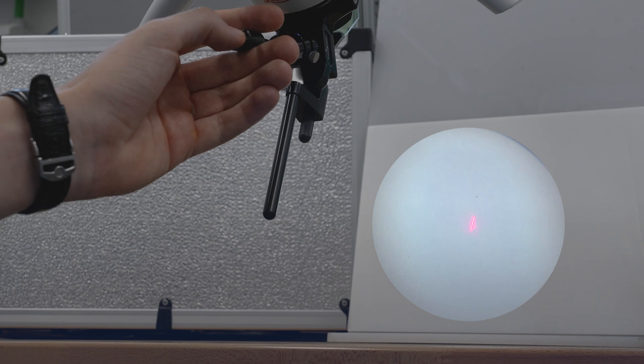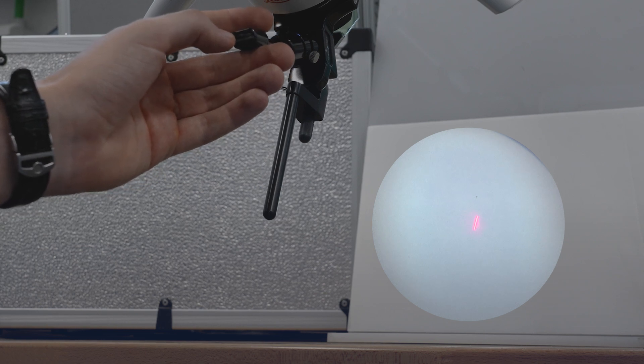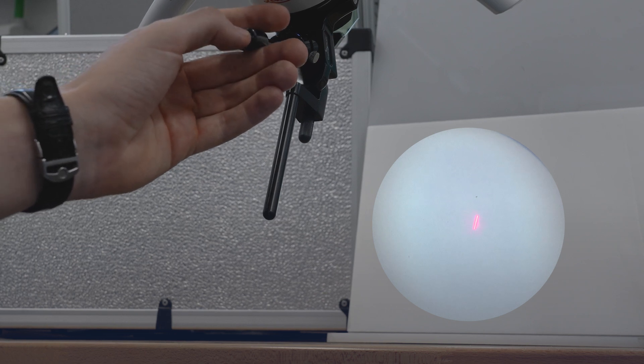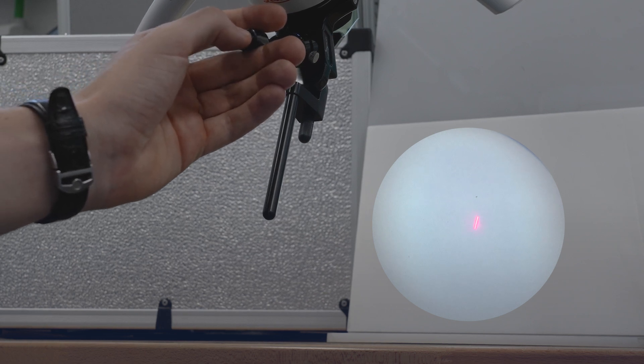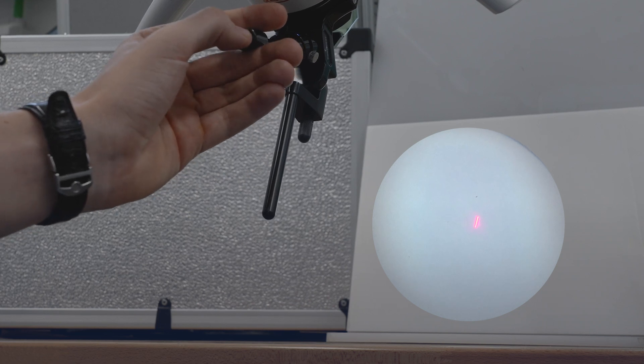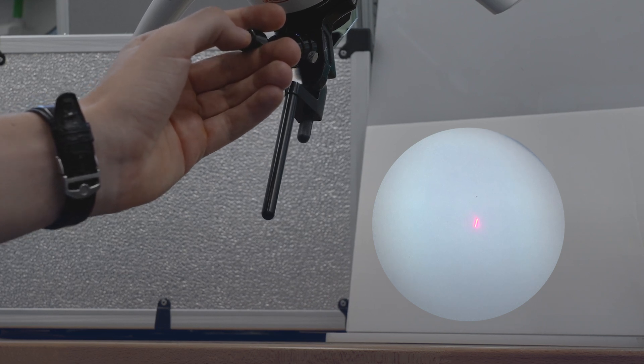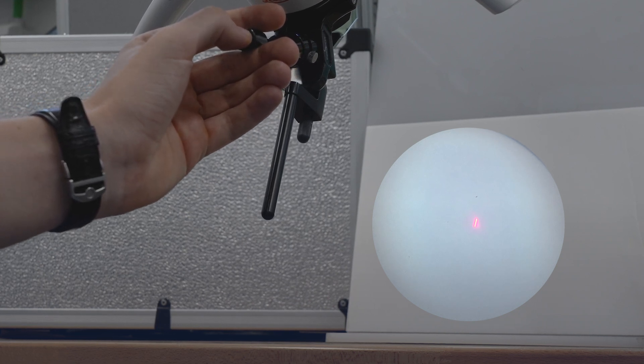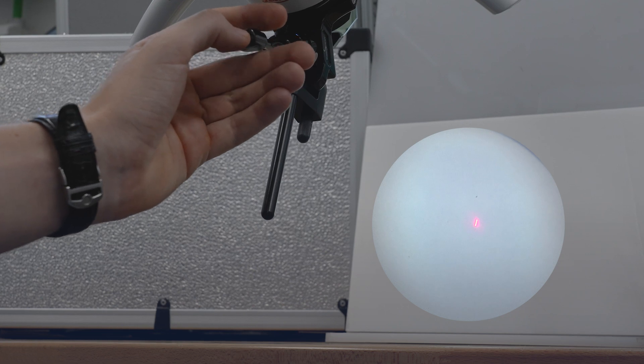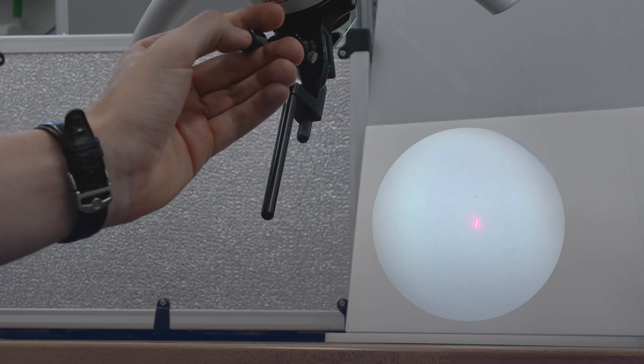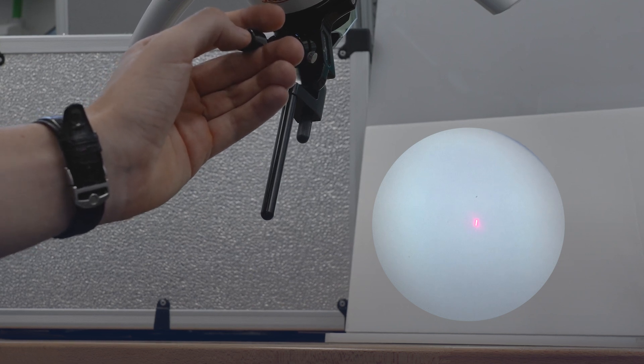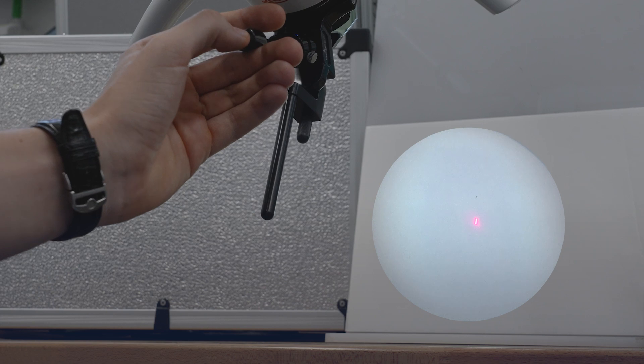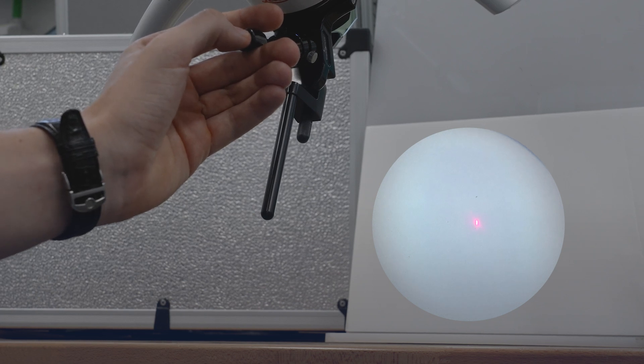The second option allows us to adjust the sides of the scanning shape just by simply clicking the joystick microswitch. This is very important as it allows us to adapt the laser shape itself to the shape of the lesion. As you can see now, I'm gradually reducing the sides of the line.